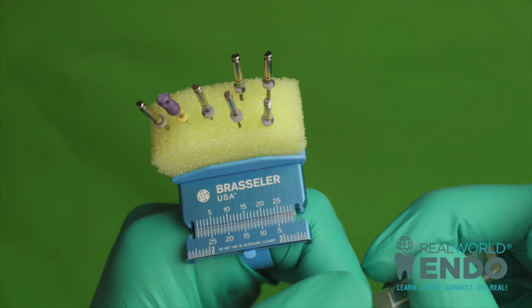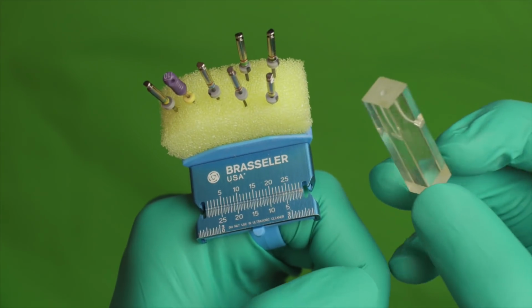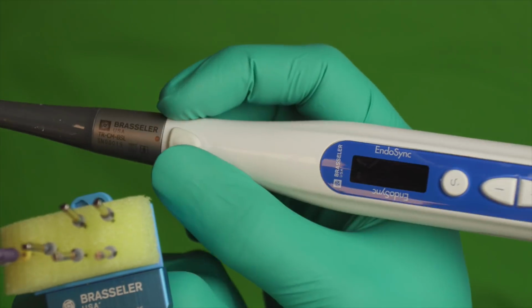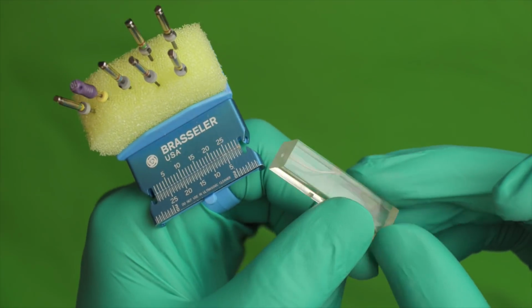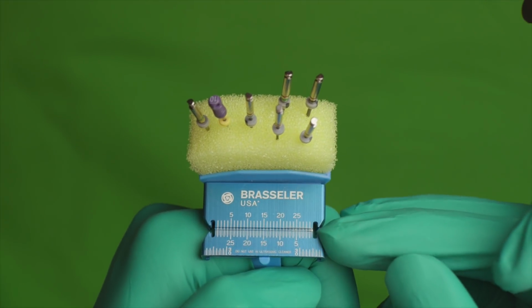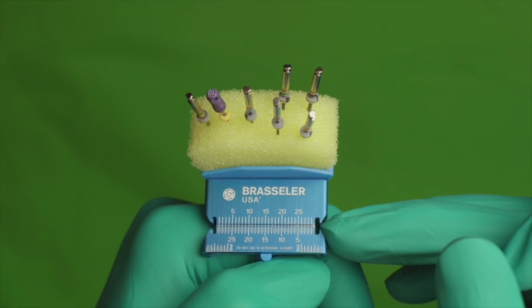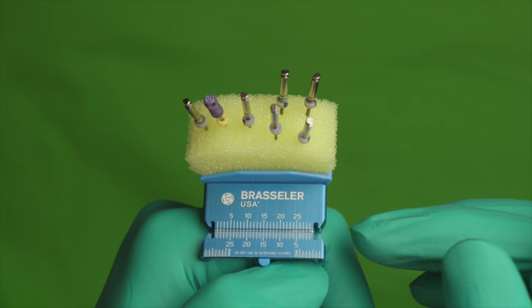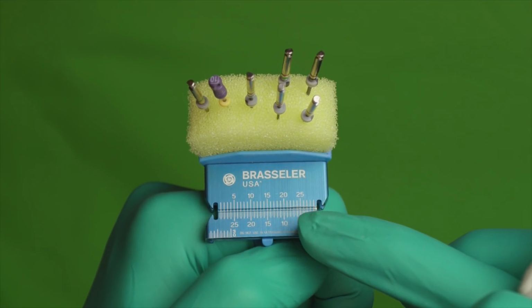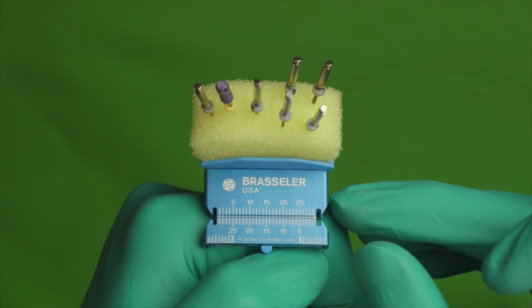Hi folks, I just wanted to demonstrate the EndoSequence blend hands-on program using the block and the EndoSequence files in the blend protocol with the EndoSync. So basically, let's just quickly go over the setup on the EndoRing. The EndoRing is a nice organizational tool to put together your files clinically so that, first of all, you and your assistant can each have an EndoRing and have a calibration between the rulers, as a metal ruler, so you can have the reading stay true between your reading and what your assistant ends up doing.